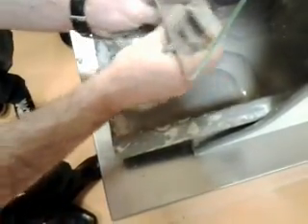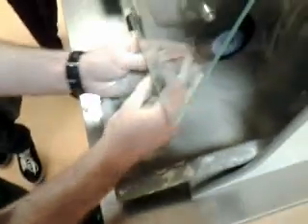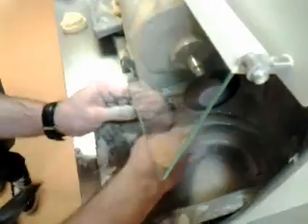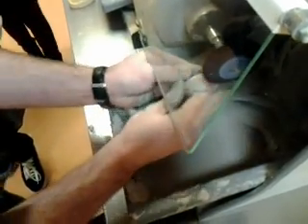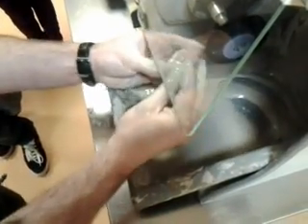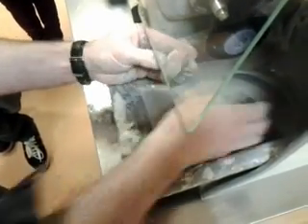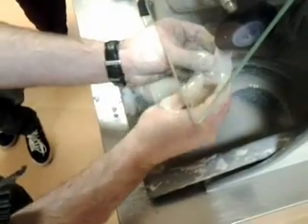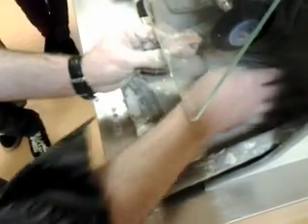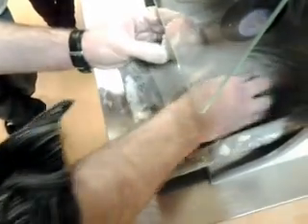Just have a look at what I'm doing — keep the pumice on there. Be careful not to pumice the teeth, because the teeth when they come from the factory already have a highly polished finish and they are finished.